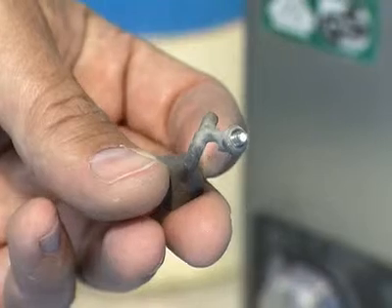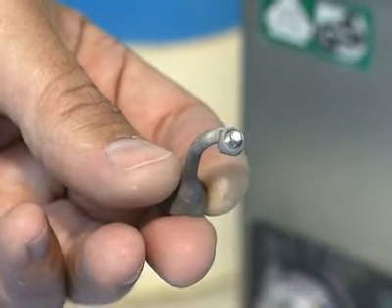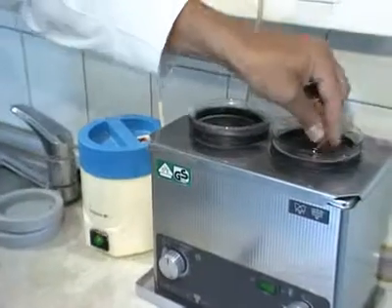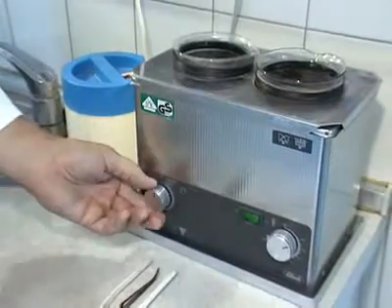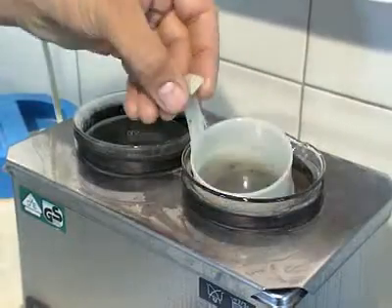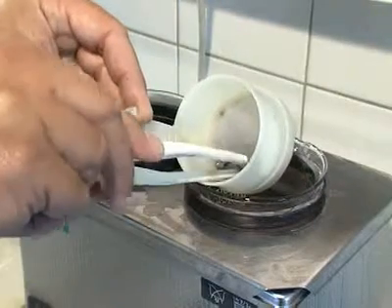After casting the customized abutment, the abutment has to be divested gently with ultrasound, water jet, pickling acid, or glass fiber brush. Never use sandblasting for divestment. This will destroy the fine margin and the implant abutment connection.